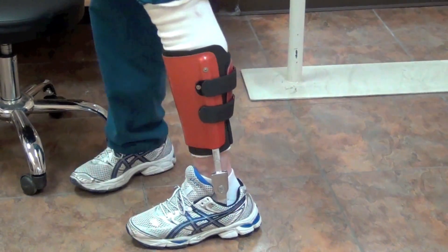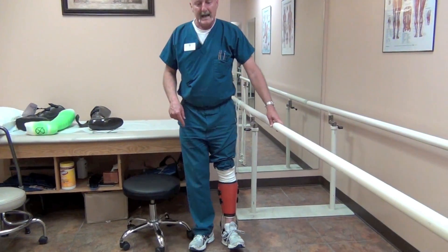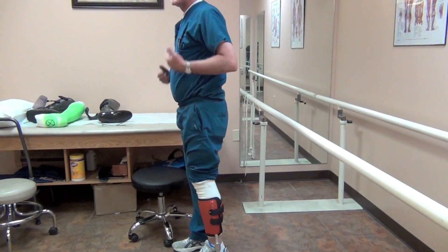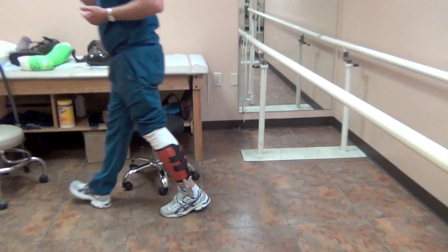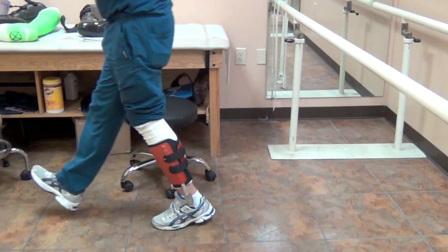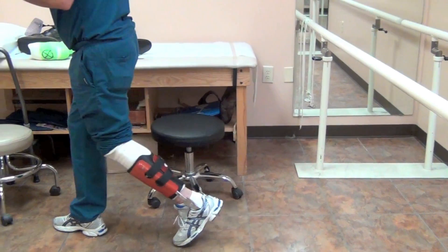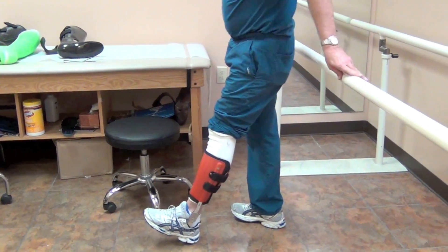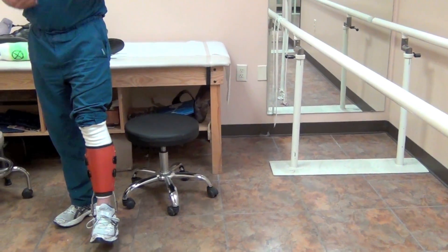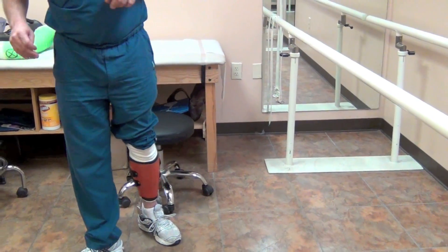I need to elevate the other foot — I've got a half-inch lift in the heel of this foot. This ankle is fixed with the knee in slight flexion, because that really helps facilitate gait. If the ankle is set anterior, as soon as the heel hits the ground it basically propels you into the next step — so alignment is very important. With the ankle locked and the heel unweighted, you can still have a beautiful gait pattern.